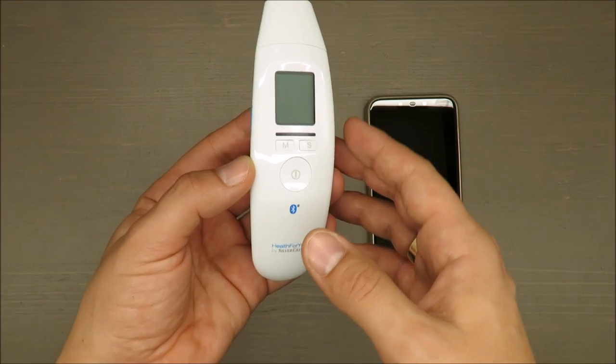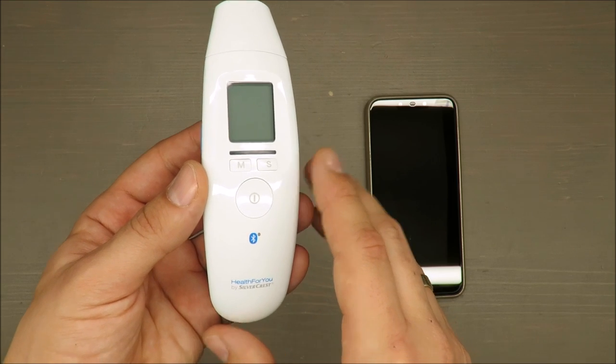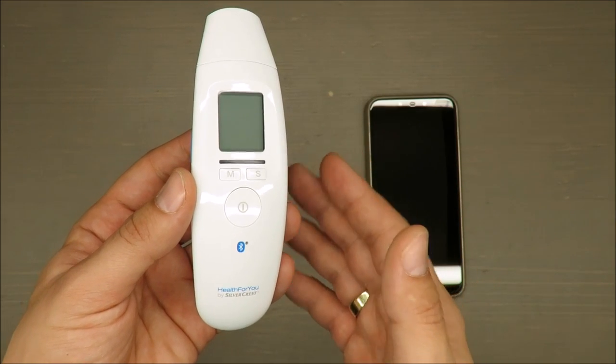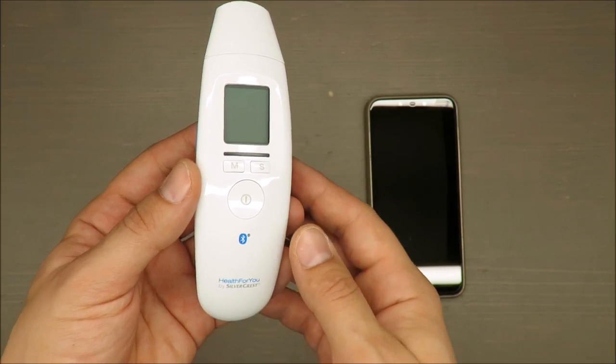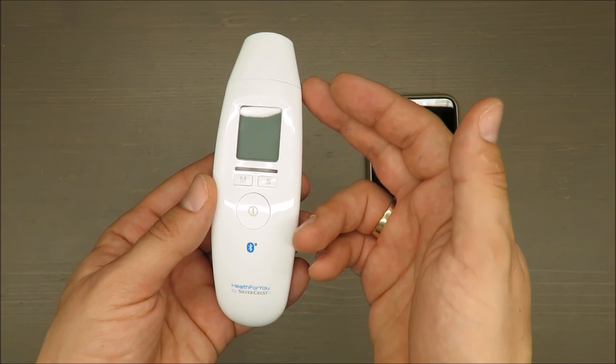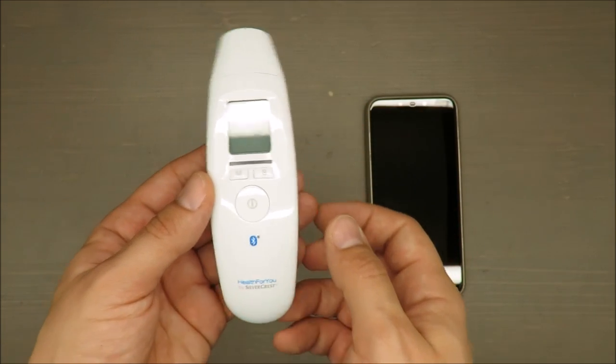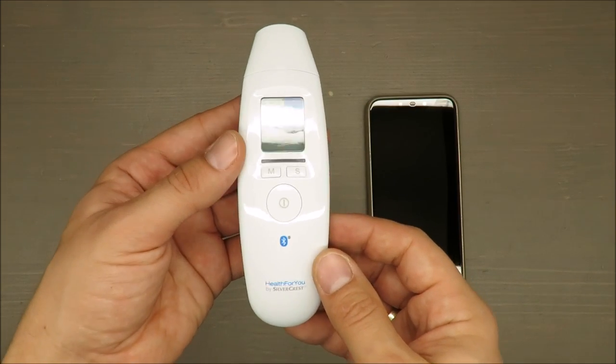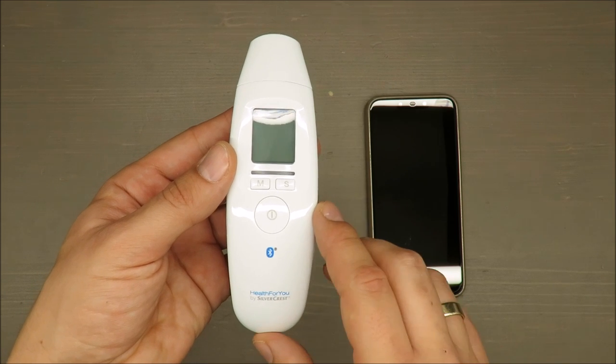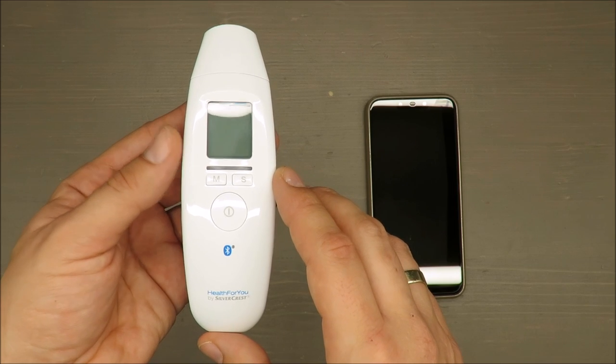It measures body temperature and can also be used as a forehead thermometer, so not only in the ear, but you can also make a measurement on top of your head.